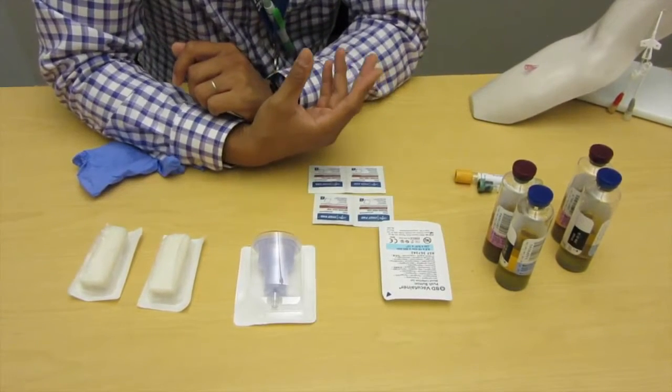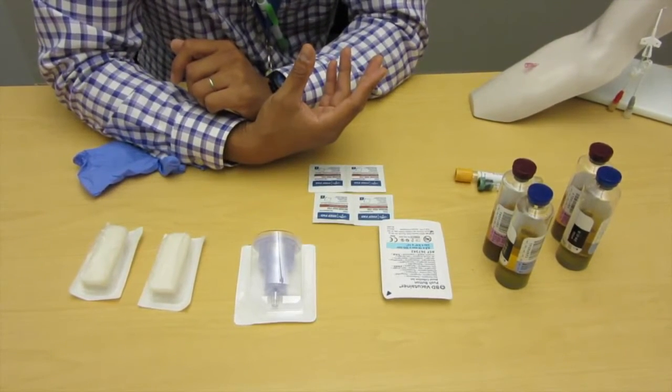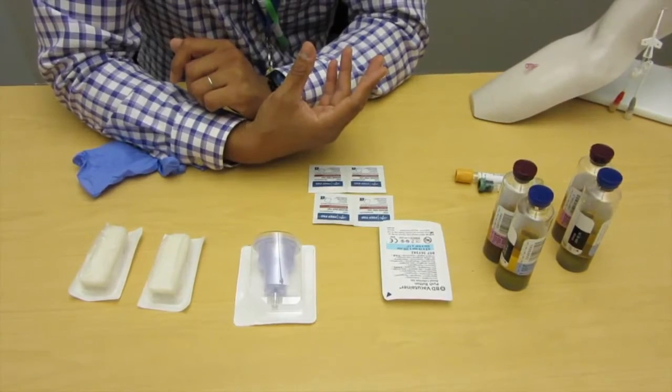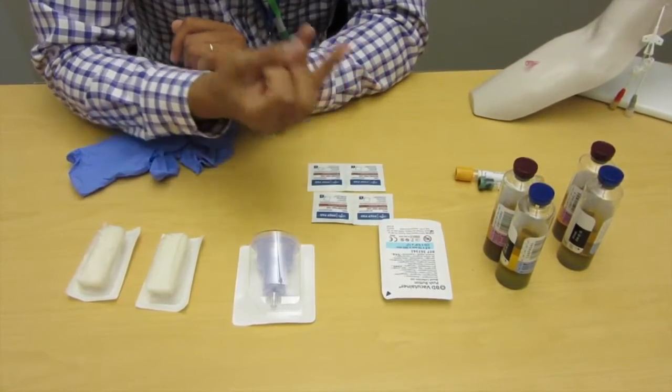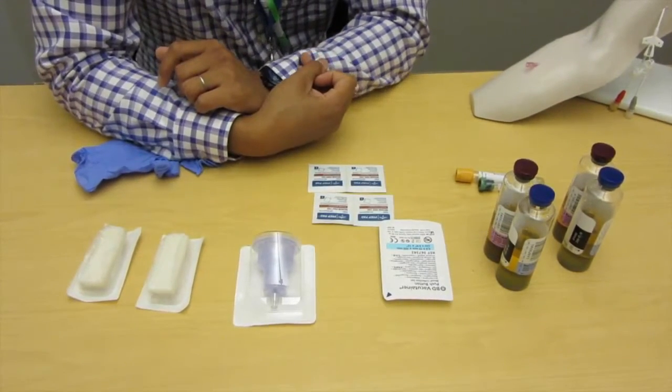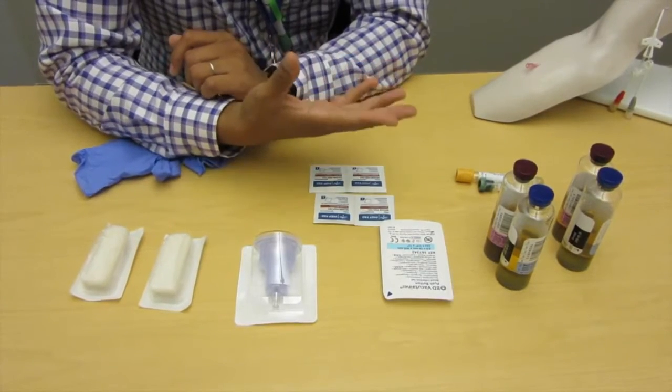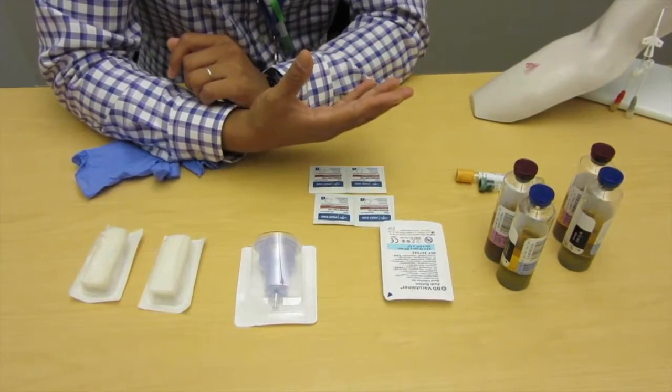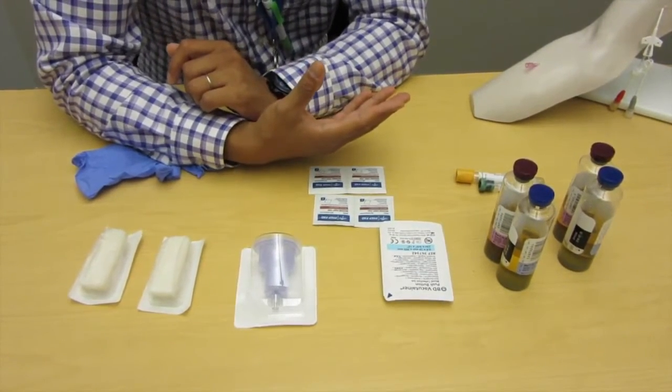As you know, contaminated blood culture samples can lead to additional problems: unnecessary hospital stays and resistant antibiotics, all because of improper technique. It is paramount that you use proper technique when drawing blood cultures.